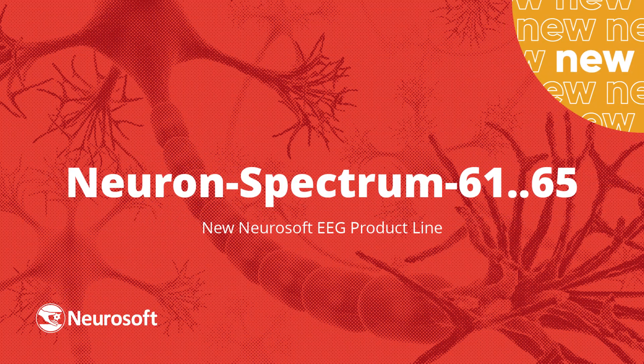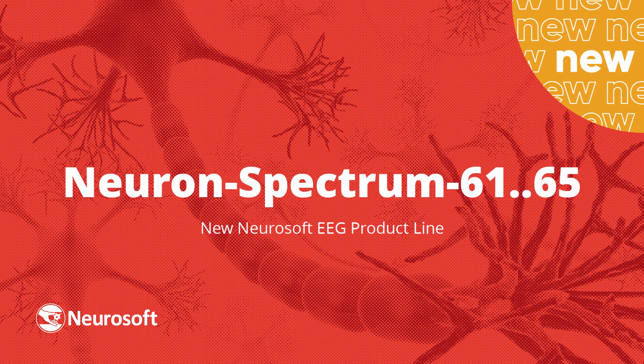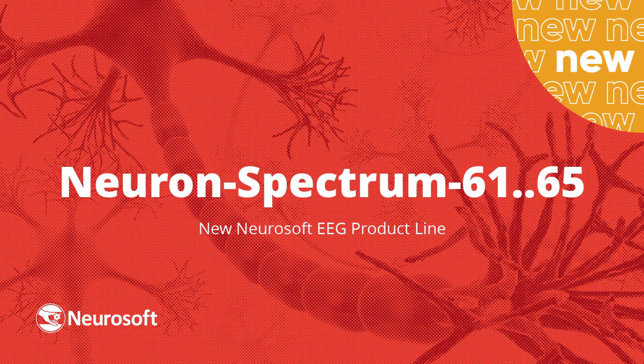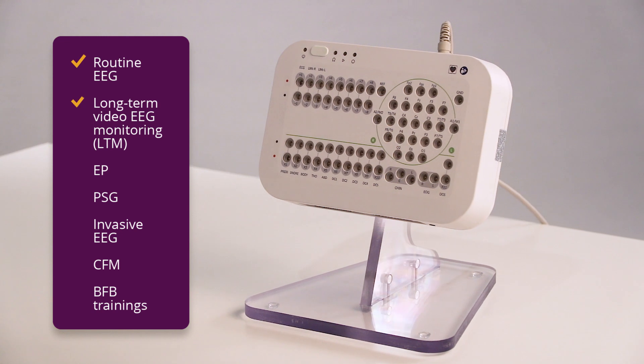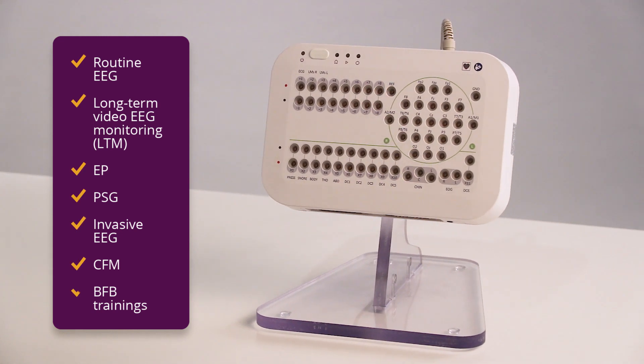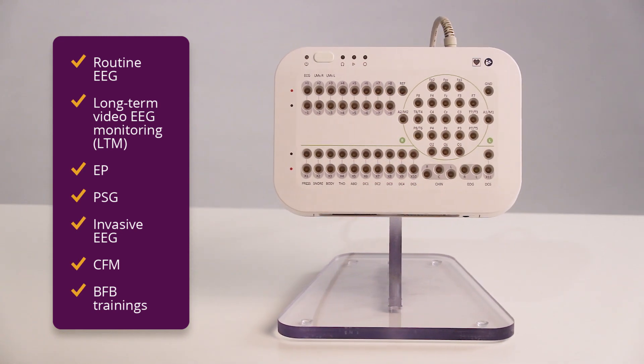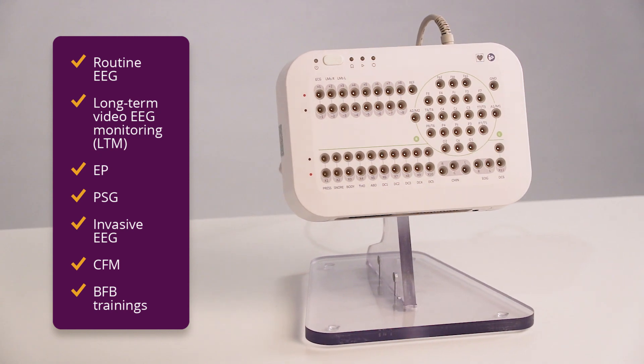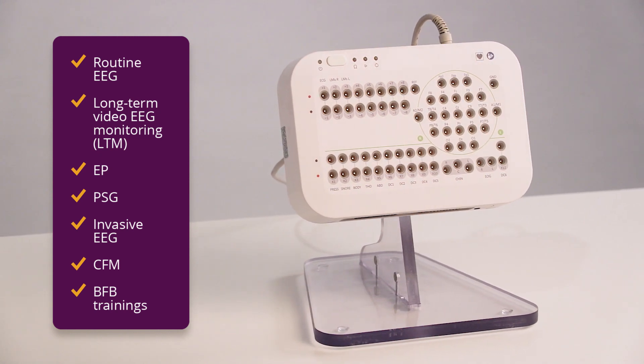Today we offer you the advanced EEG system which will definitely comply with every your request. It doesn't matter what you're supposed to do: routine EEG, long-term video EEG monitoring, LTM, EP, PSG, invasive EEG, CFM, or BFB trainings.